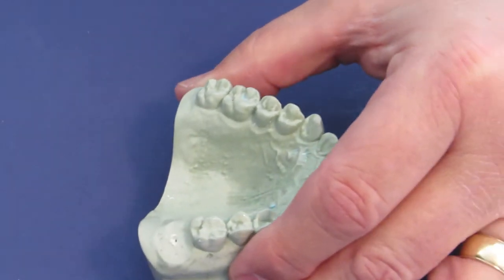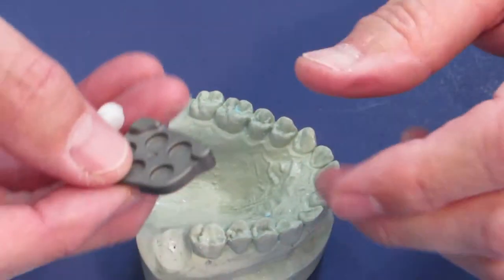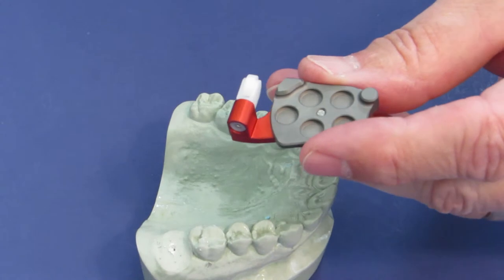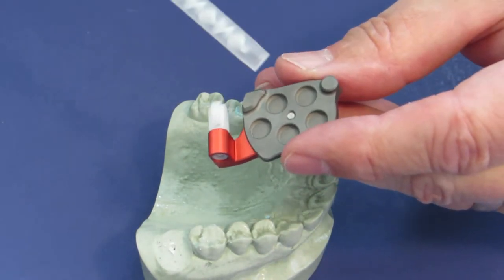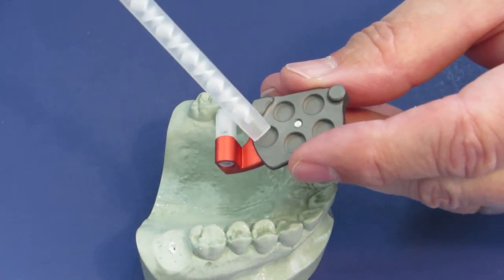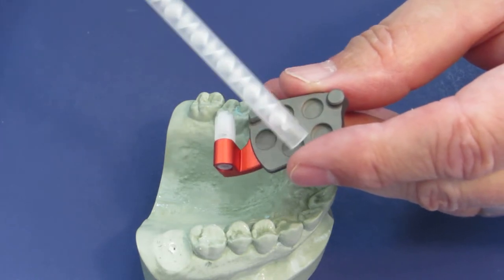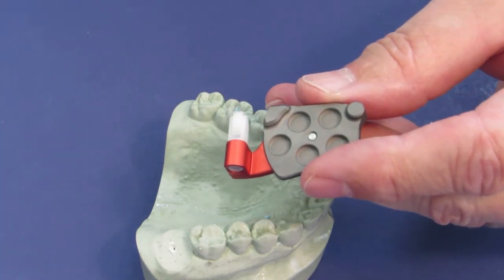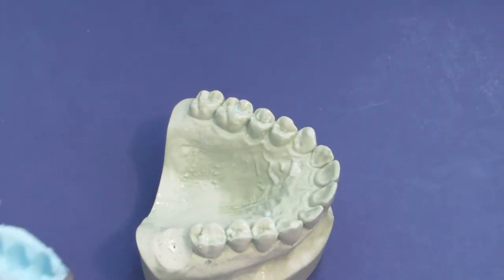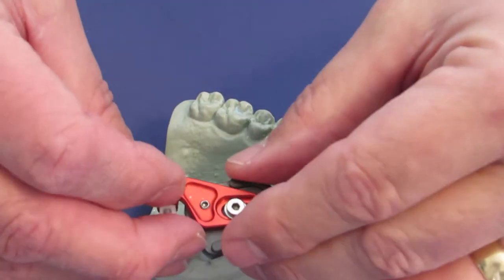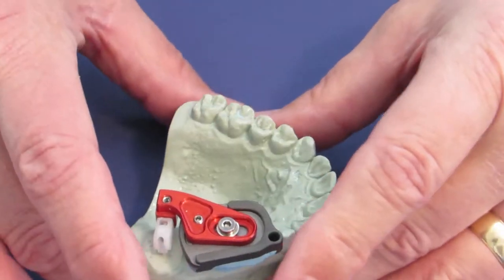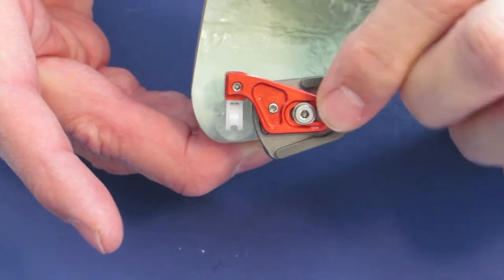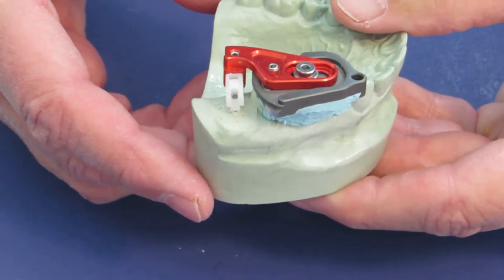Now I am going to take a guide and I am going to put some bite paste right here on the receptor sites on the bottom. And then with the bite paste I can just flip it over and place it over the implant site and let that dry.